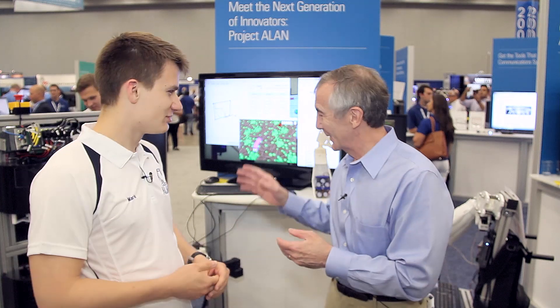Hi, I'm Lee Teschler with EE World and Design World. I'm here with Mark. Mark is on a team from the University of Leeds who've developed a device for helping to rehabilitate people who've had strokes. He's got one of his instruments that they've developed right here behind us. He's going to tell us a little bit about what they did. Mark, explain the mechanism that's operating quite nicely behind us and the display we're seeing behind that.